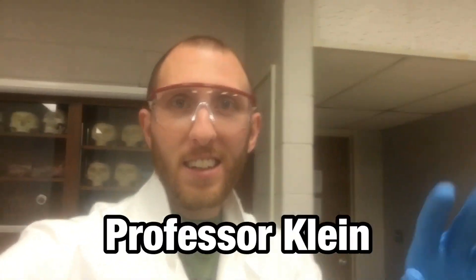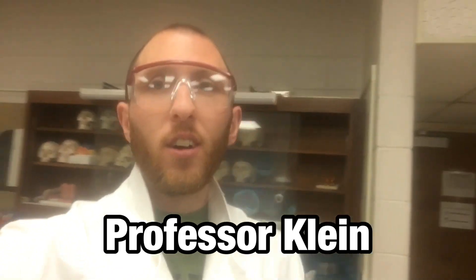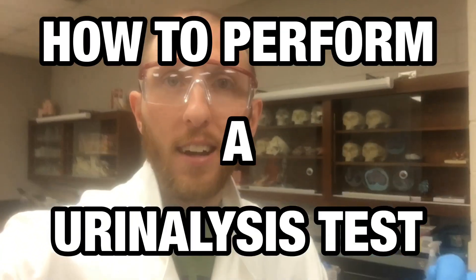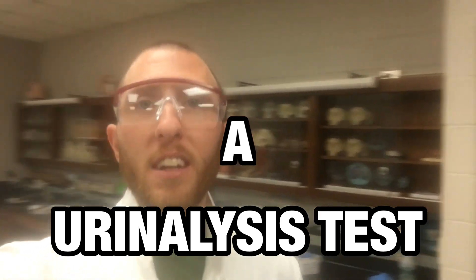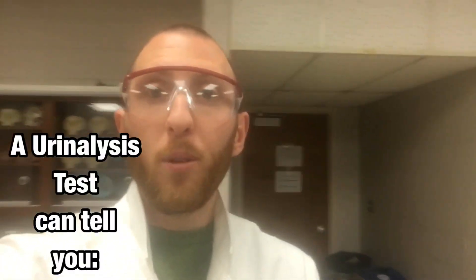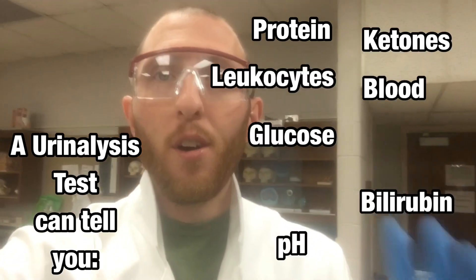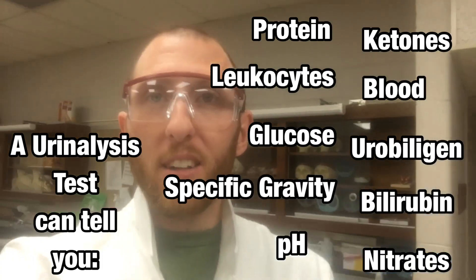Hey everybody, welcome back. Professor Klein here bringing you a quick video on a urine analysis test. This is a skill that we would do in lab and have all the students do a urine analysis test, because it's so important in the hospital and can tell you so much about what's going on with the patient.